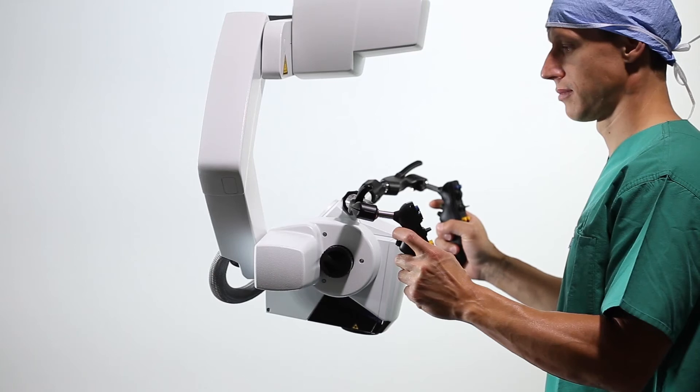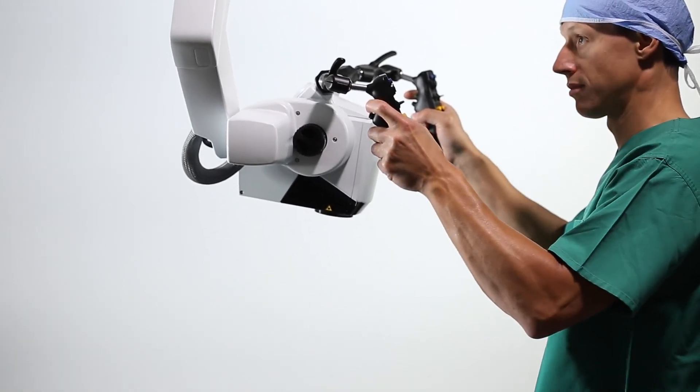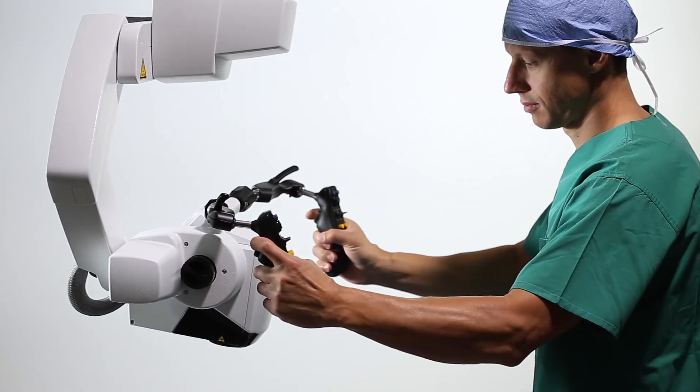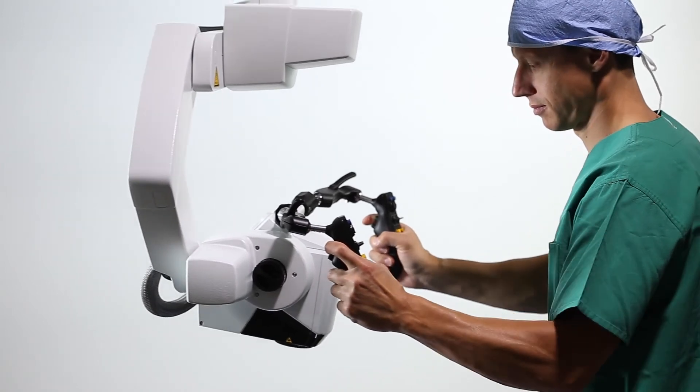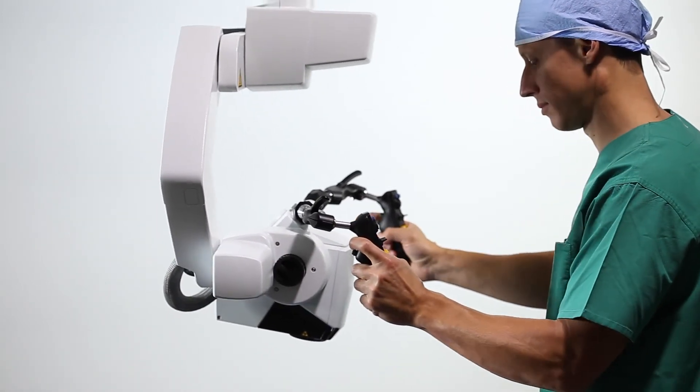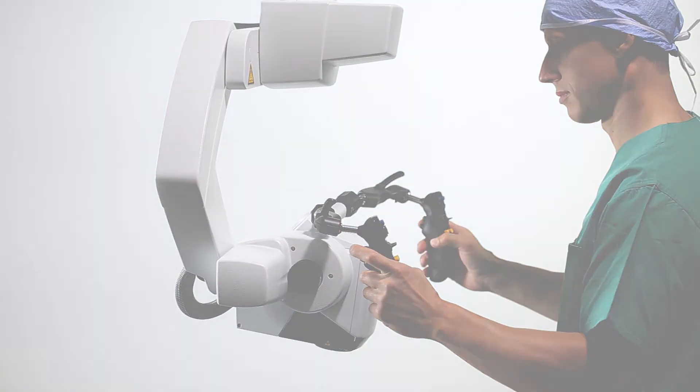Activating stand brakes enables movement in the X, Y, and Z axes without tilting the visualization head. This is a standard use case in neurosurgical procedures.